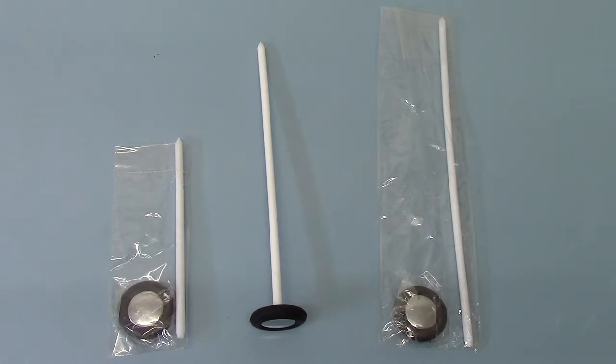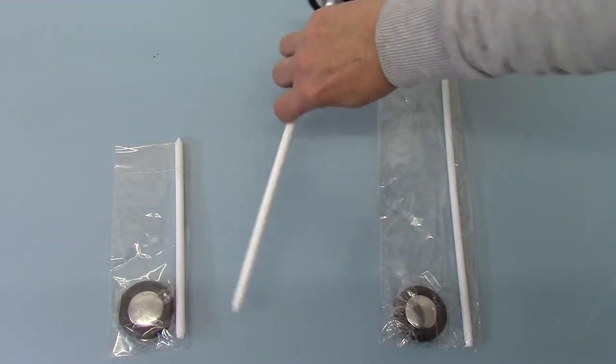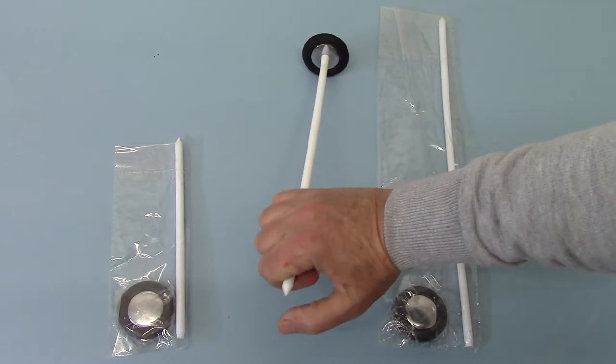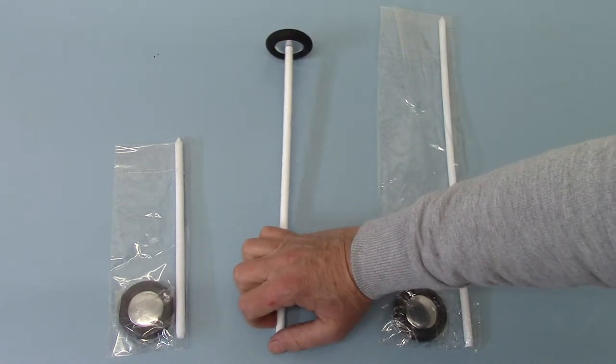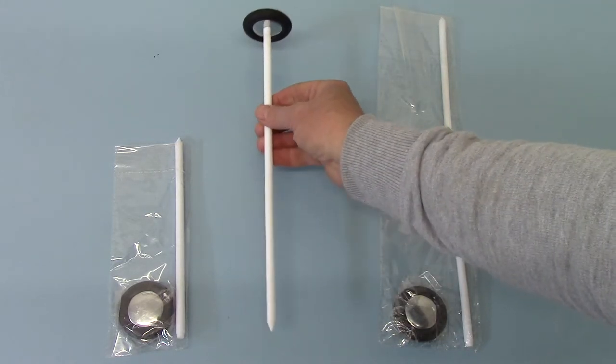These are good, robust handles, and you'll also note on each version you have got the sharp tip for doing your reflexes in addition to the straight hammer reflex.